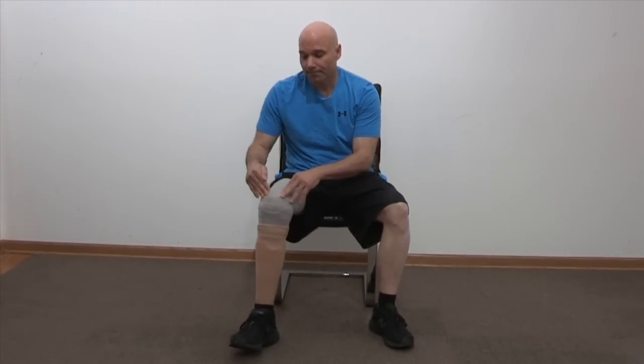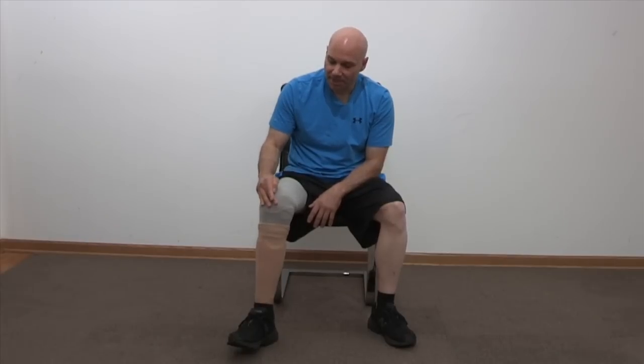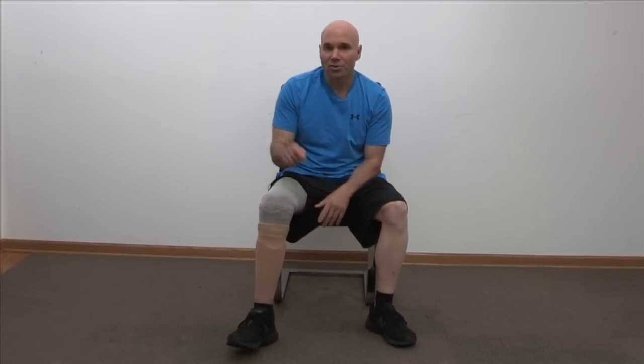The EMS system will work very well for above-knee amputees. I met someone who was fitted through Paramount Prosthetics with an above-knee EMS system and was having great results. For anyone with below-knee amputation, for me it's been by far the best prosthetic system I've ever experienced. In the notes below, I'll have information for Paramount and McKinney Prosthetics where you can get this. Otherwise, you might want to check out Carl Kaspers' website and he may be able to help you find someone in your area if you live far away. Thank you.